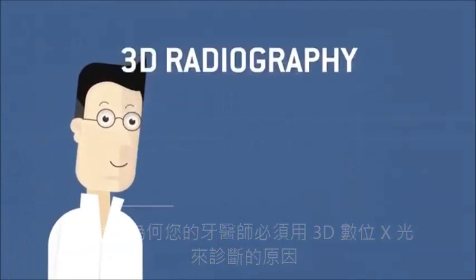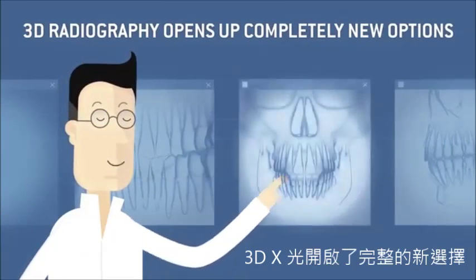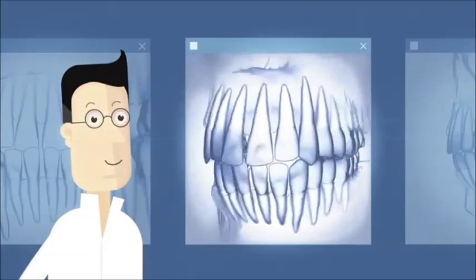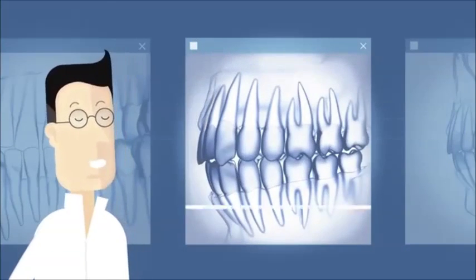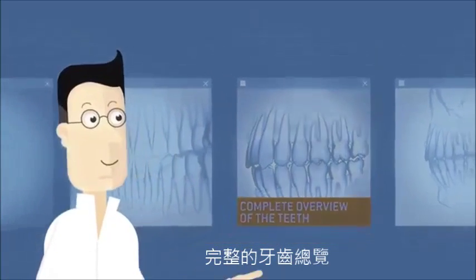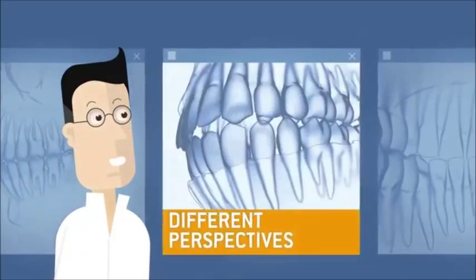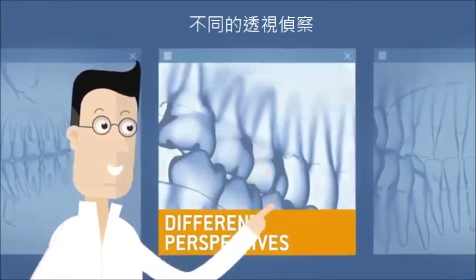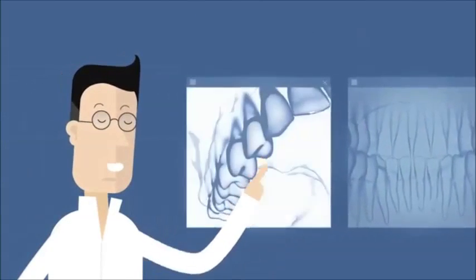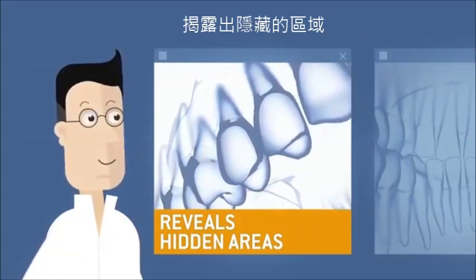A 3D X-ray image opens up completely new options for diagnosis. Just one image gives your dentist a complete overview of your teeth in all dimensions. He can select different perspectives and even see the interior of your teeth and bones. With this ability, your dentist is ideally equipped to tackle any hidden problems.